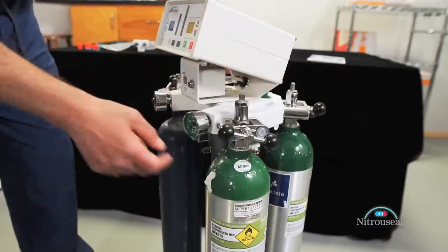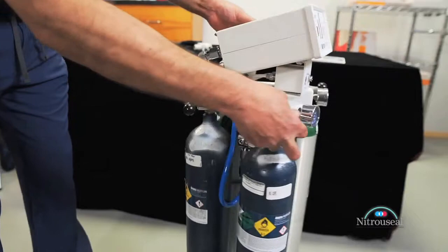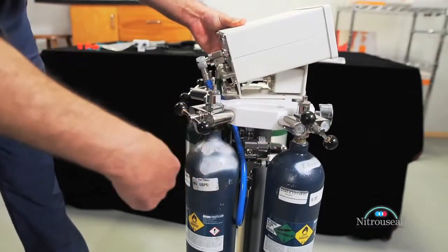Repeat this process until all four E-cylinders are securely mounted to the manifold bracket, the two juxtaposed oxygen E-cylinders on one side and two juxtaposed E-cylinders of nitrous oxide on the other opposite side.